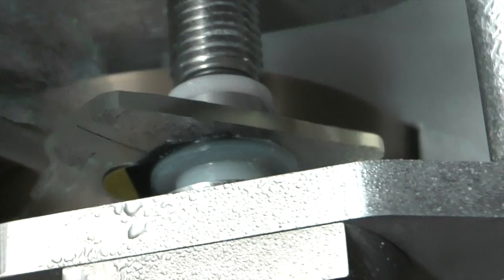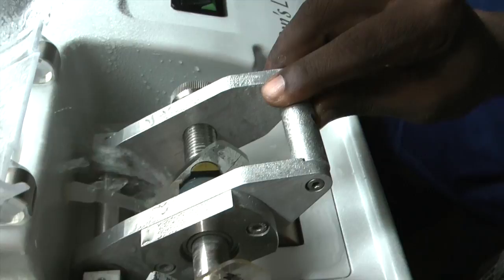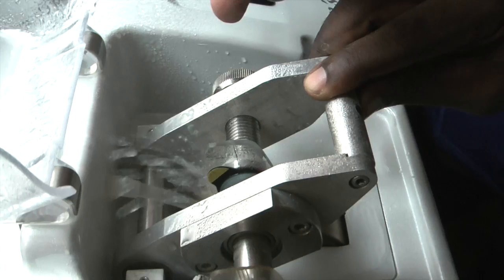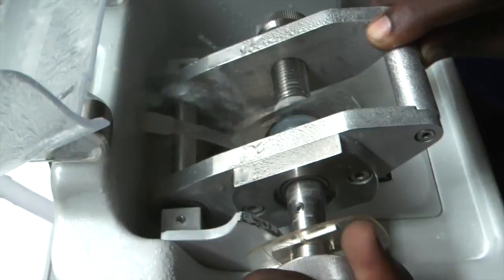When we are cutting the lens we have to make sure that the lens clamp screw at this end is kept tight. That's why it's good to hold that screw to make sure it doesn't work loose. If it works loose you'll find the lens will slip and it will affect the shape of the lens.